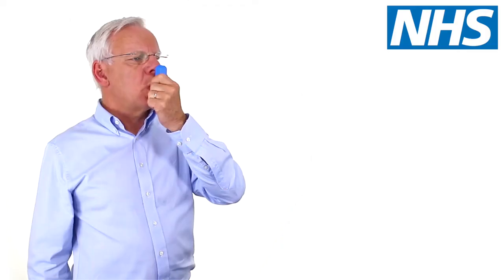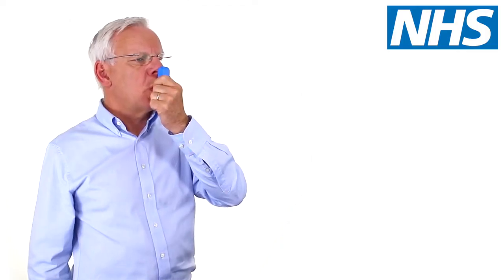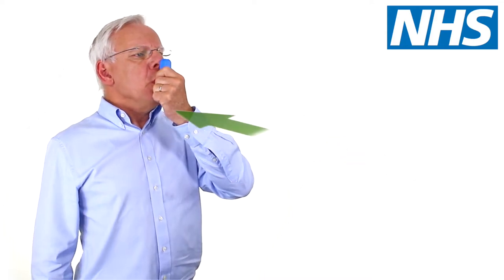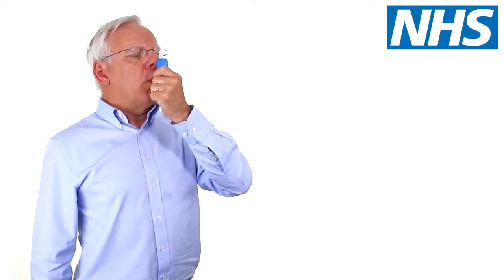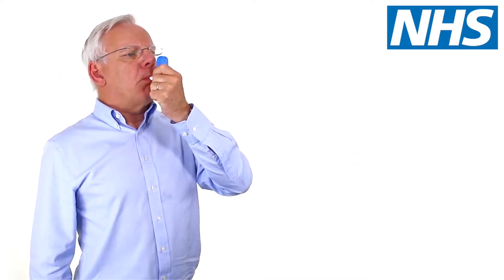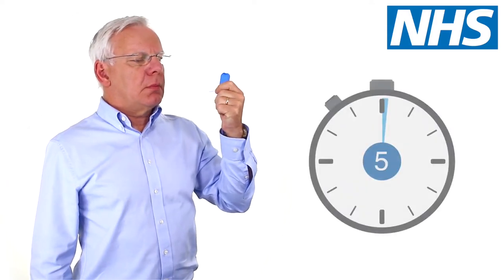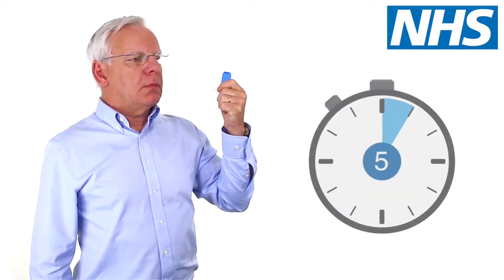Breathe in through your mouth as fast and as forcefully as you can. If you don't breathe in deeply enough, the medication will not reach your lungs. Remove the inhaler from your mouth while holding your breath for at least five seconds.